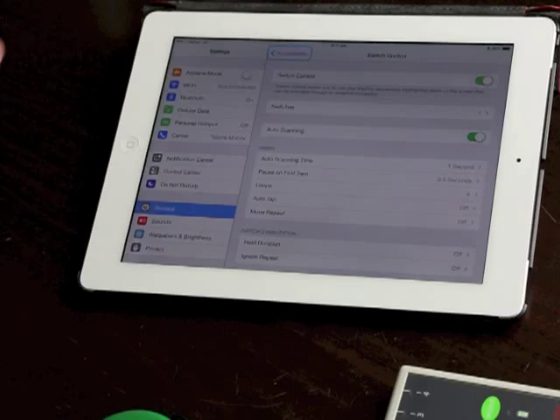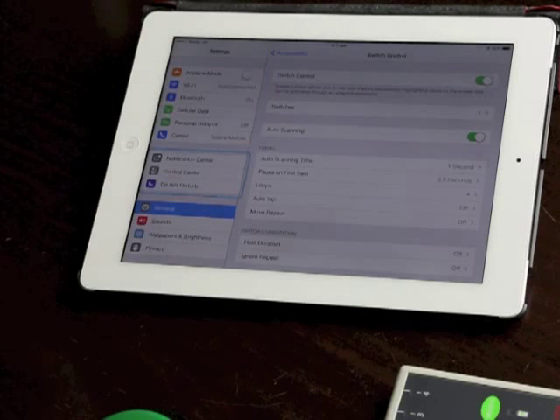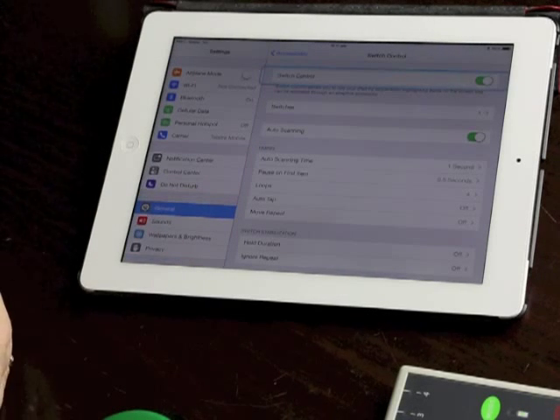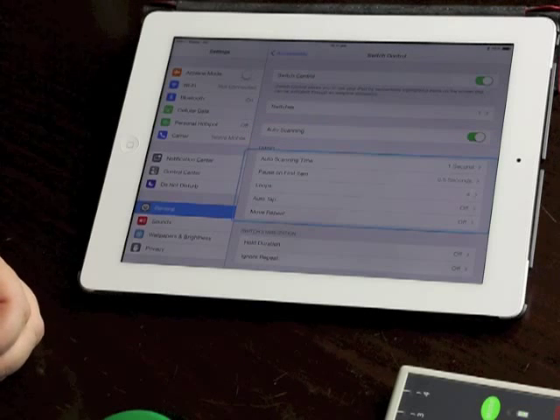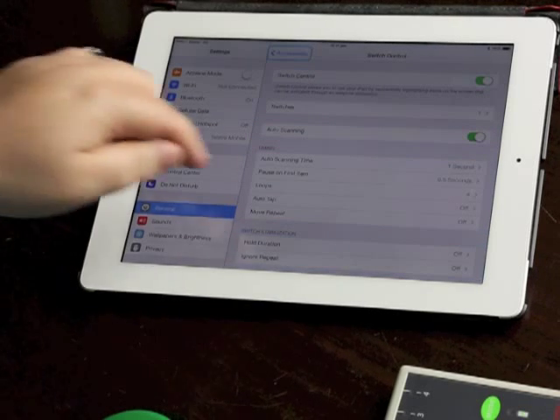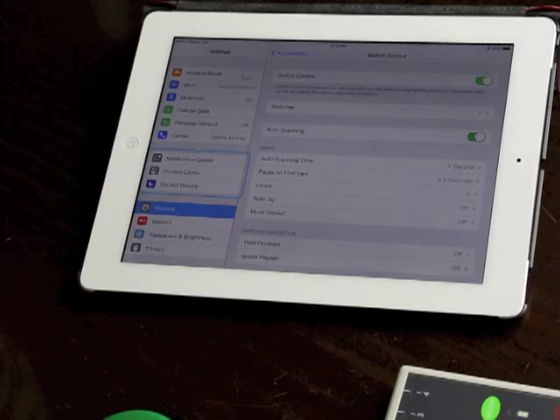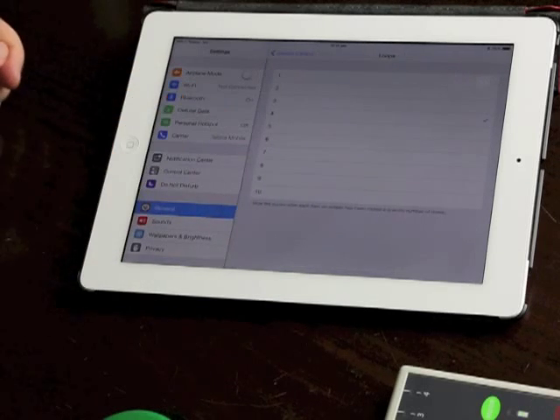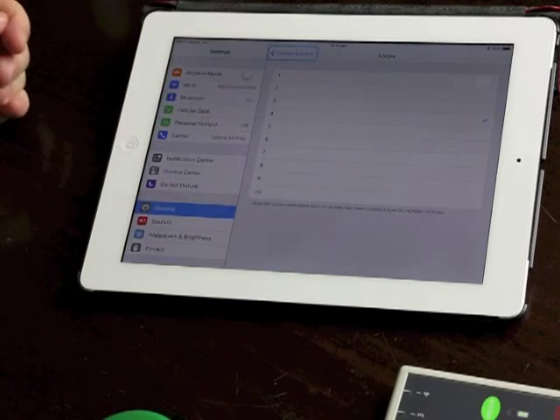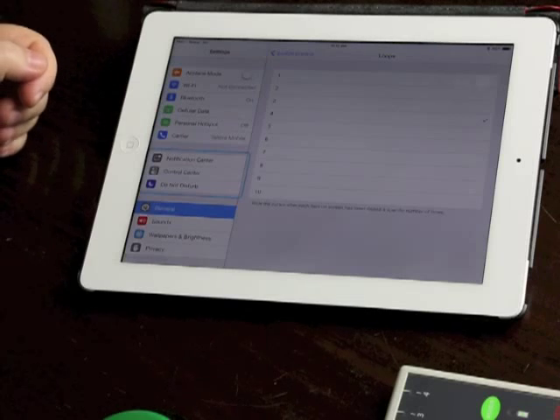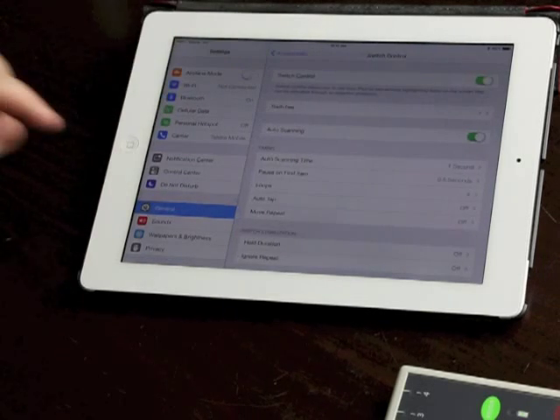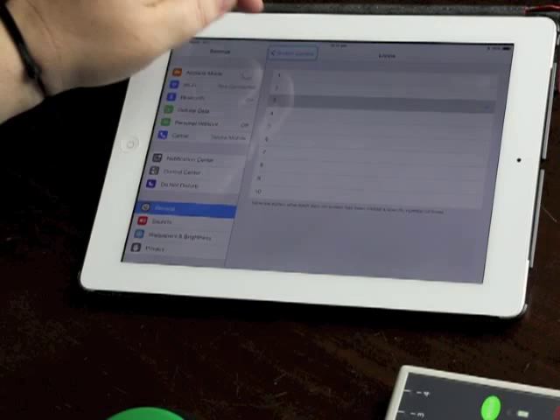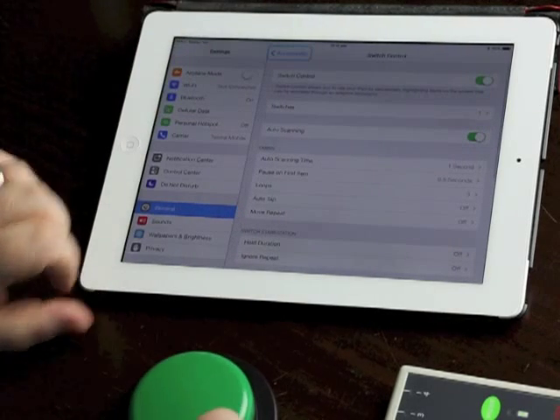Loops is the number of times it's going to go around the screen after I press the switch while it's looking for me to press the switch again. If I don't press it, it will go around four times and then turn itself off. Most users prefer 3, 2 or 1 but you can go all the way up to 10 loops if that's what you need. I'm just going to go back in there and set that to 3 actually, that's my preference.